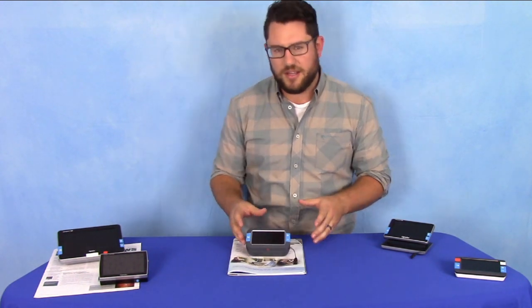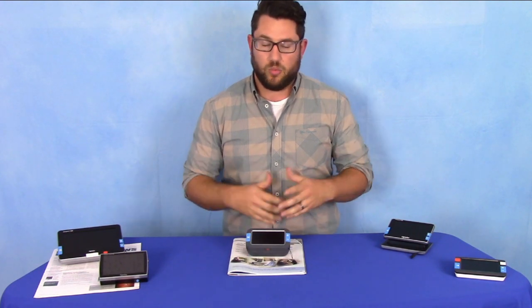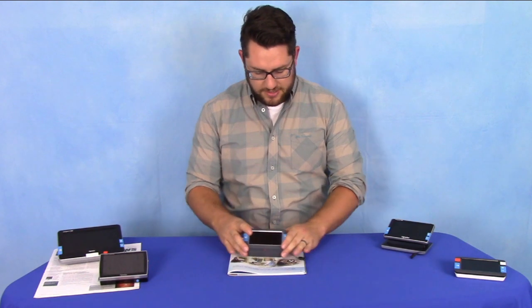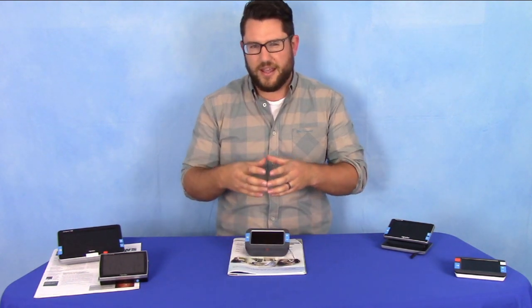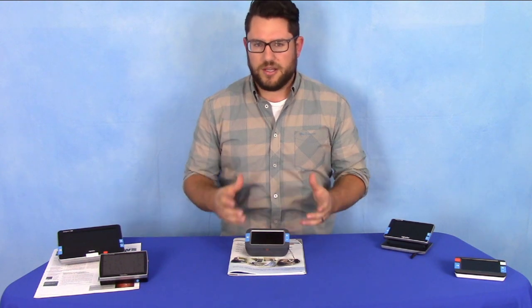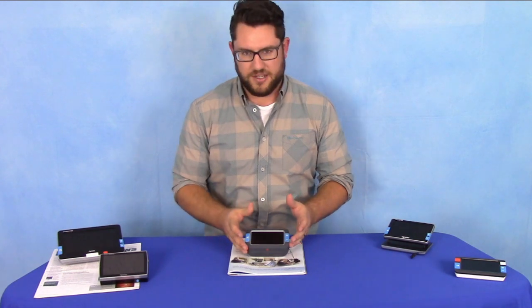What's really nice about this product is it mimics the dome magnifier, which is a very popular magnifier worldwide. A lot of people like that dome magnifier that slides easily over the paper. It feels good in the hand, it's a little bit bigger and more weighty, so it's really nice to use. Now we have that in an electronic format with this Compact 4 HD.